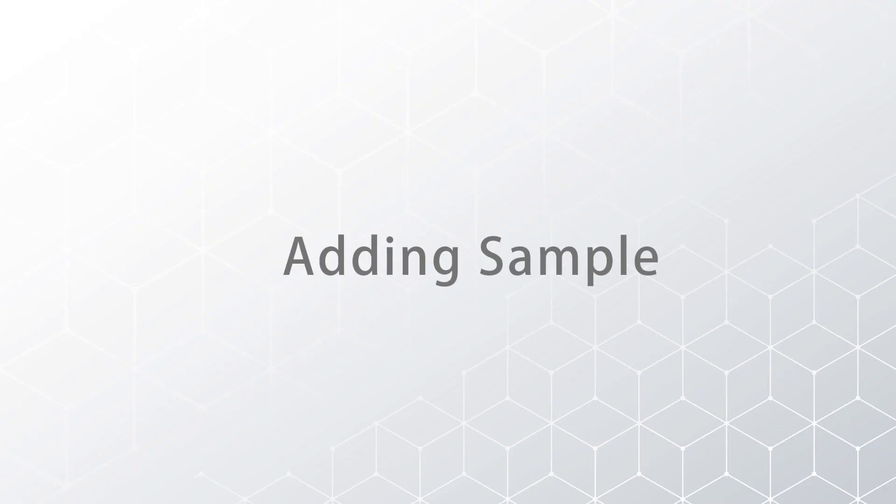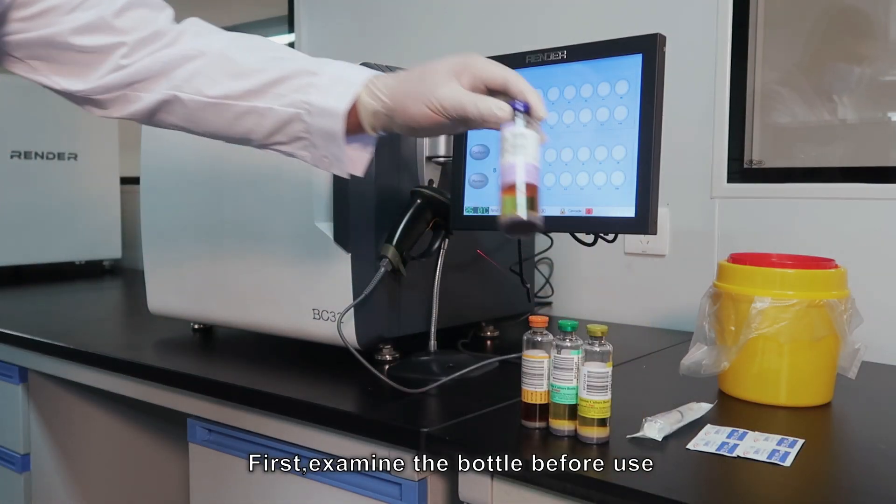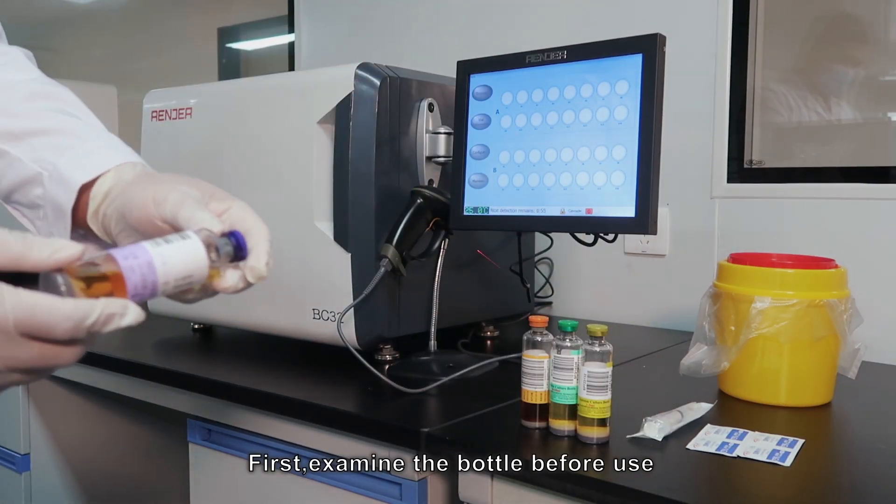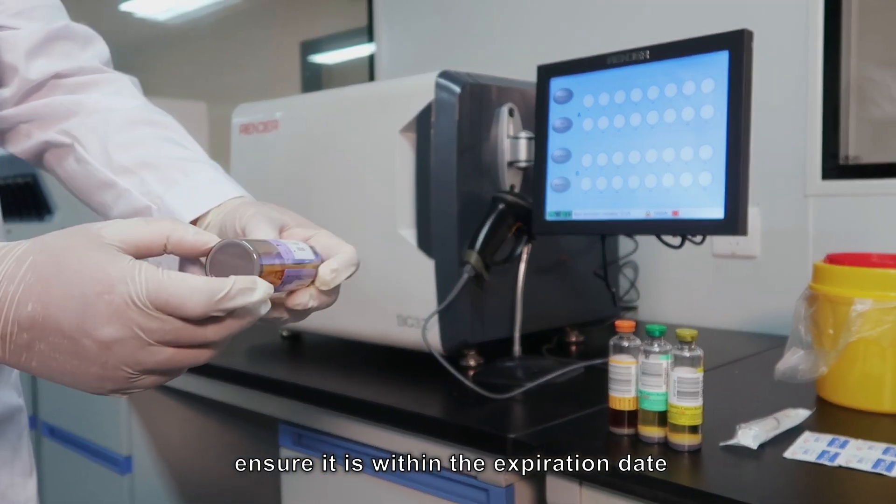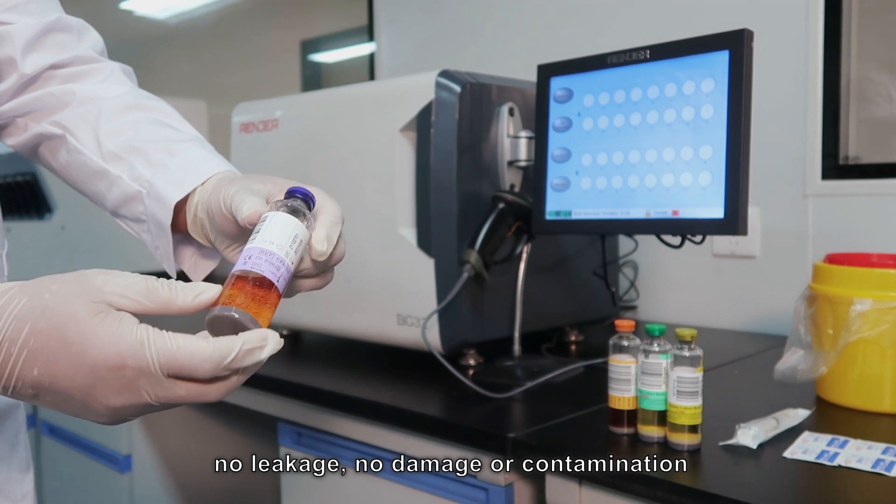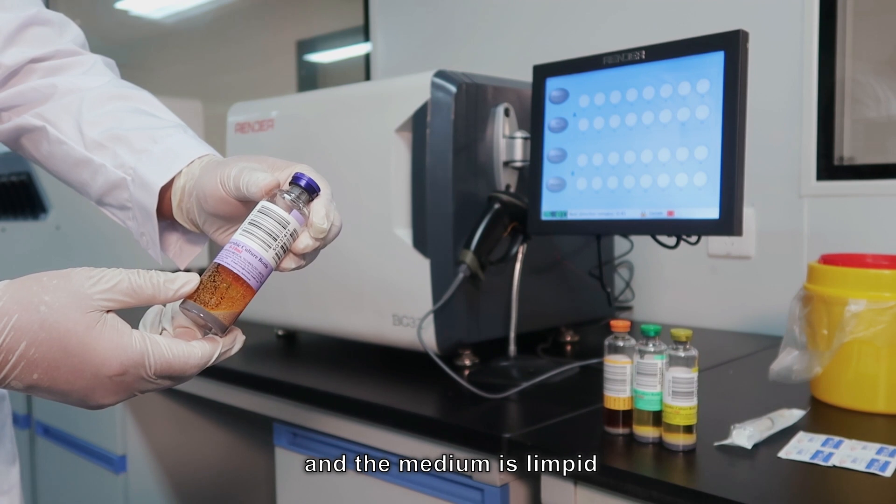First, adding sample. Examine the bottle before use. Ensure it is within the expiration date, no leakage, no damage or contamination, and the medium is limpid.